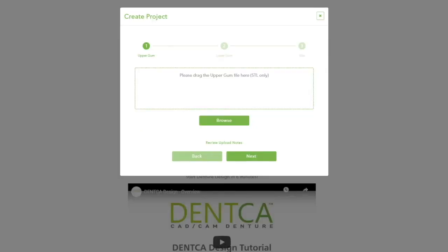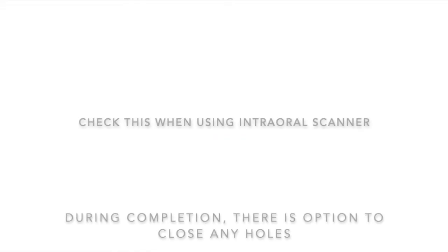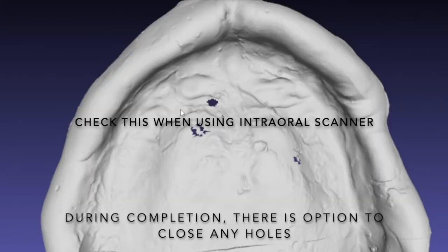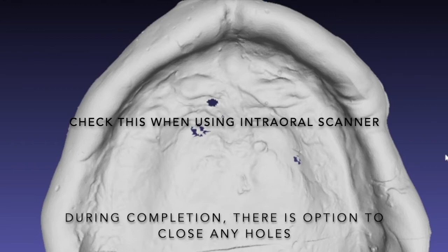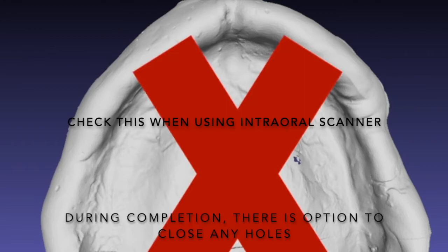Uploading Scanned Files. Whether you are designing a single arch or a complete set of dentures, the first step is to obtain three scanned files of the current case you are working on: maxillary, mandibular, and bite. Before you start uploading your files, it's important to ensure they do not have any holes inside the intaglio area you are planning to use or trim, and are free of steps or multilayers in the case of an intraoral scan.